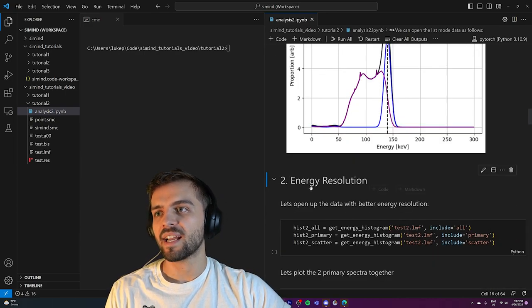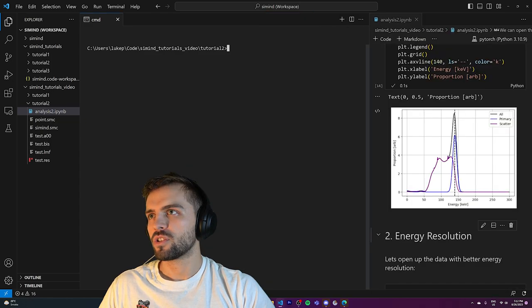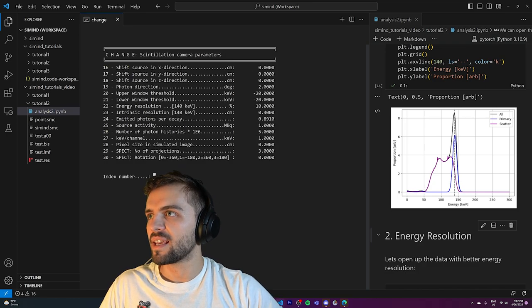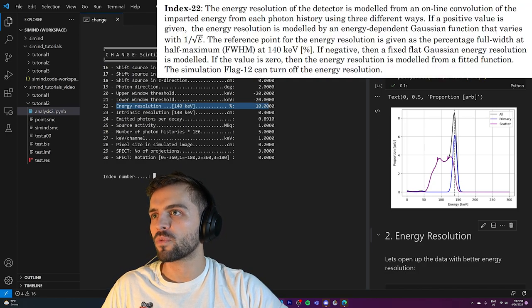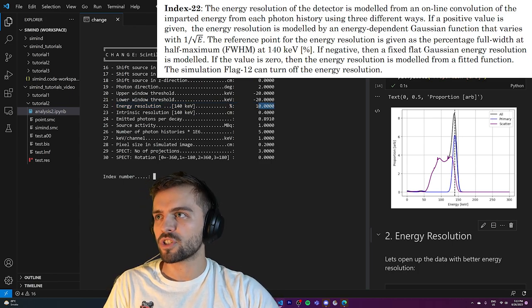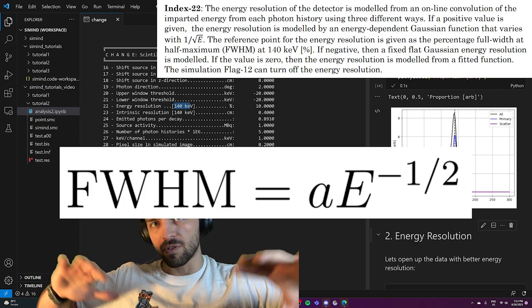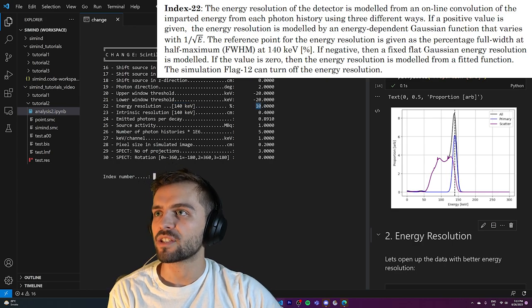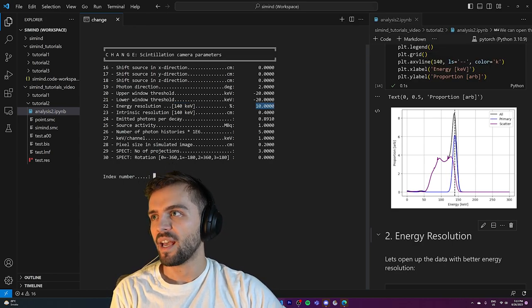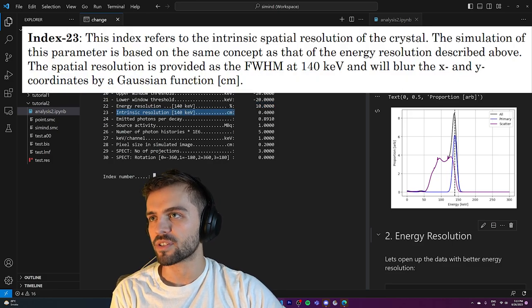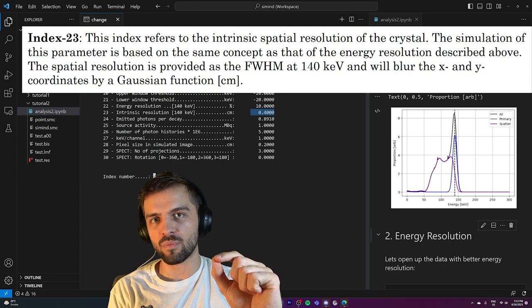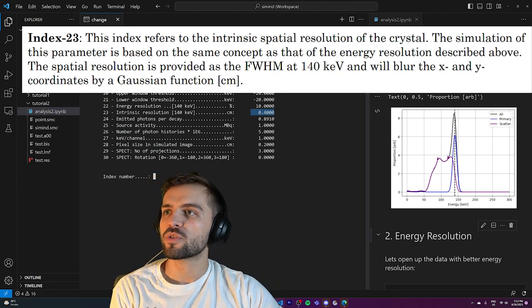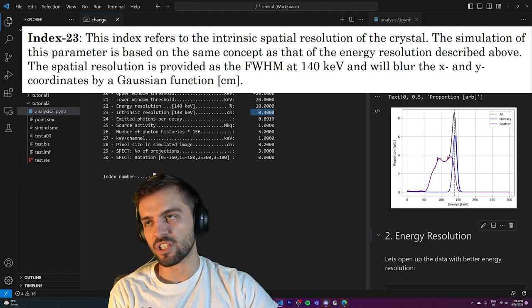The width of this peak has to do with the energy resolution of the detector. If we go into our parameter file — change point.smc — you'll note there's an energy resolution at 140 keV. As long as you give the energy resolution at 140 keV, it can interpolate using the fit function to find energy resolutions at other energies. In our case, it's set to 10% energy resolution. There's also something called intrinsic resolution in centimeters, related to the resolution of where the photon gets placed when detected.